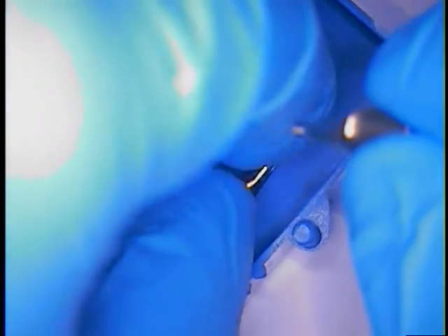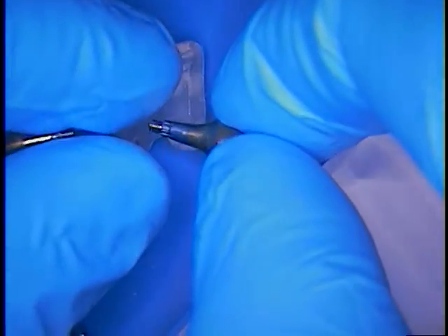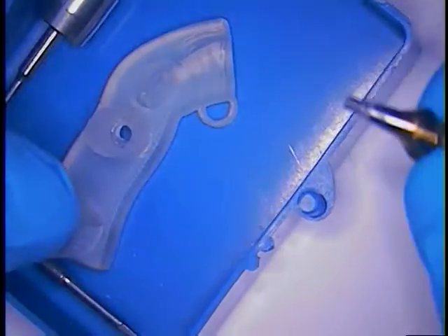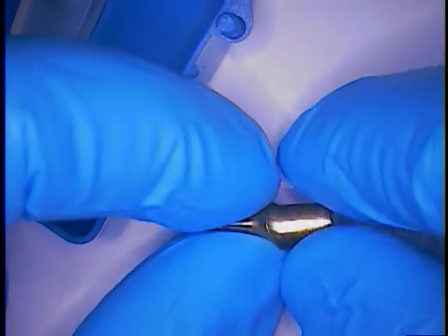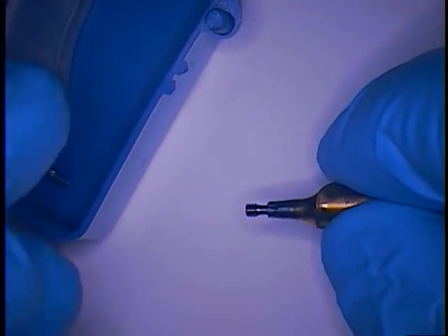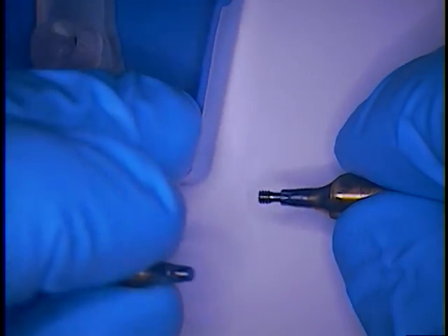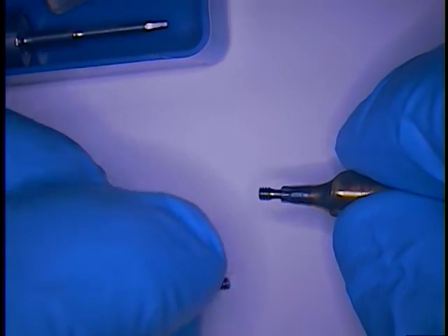I believe Atlantis is the name of the company and these are probably the most narrow implants at the neck that you can find. The nicest thing about these implants is you get such an amazing fit. It's a little difficult to design in the lab but all in all you get such a great fit and it's such a great outcome.